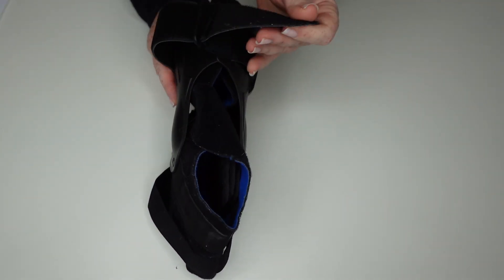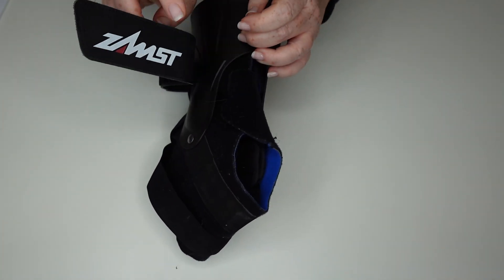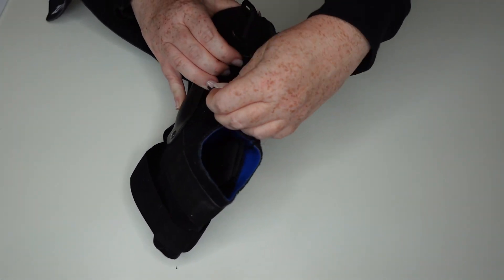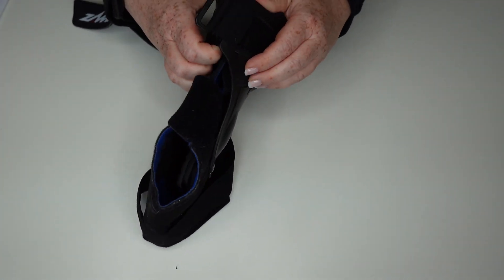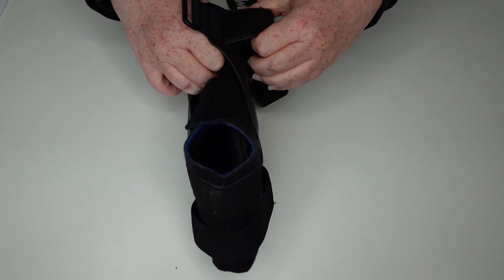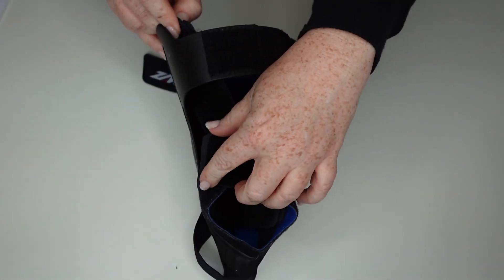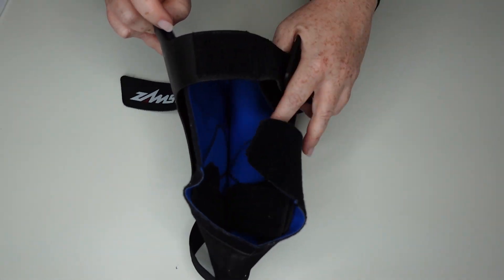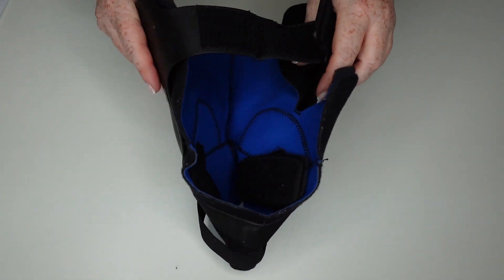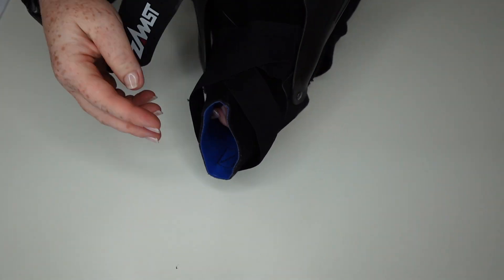Because this one opens from the back, you undo it here and then pull it through. You slide your foot in through the back and then out through the front over here.